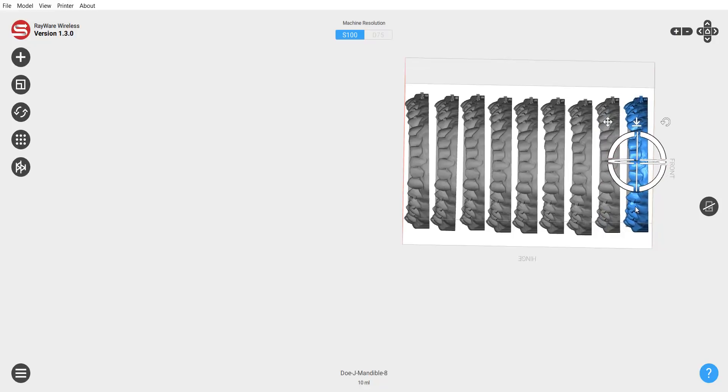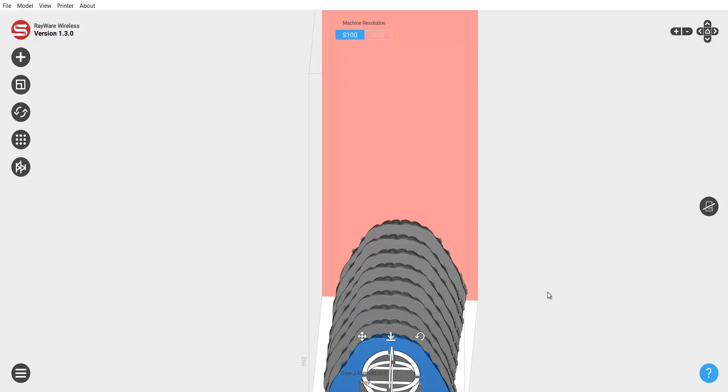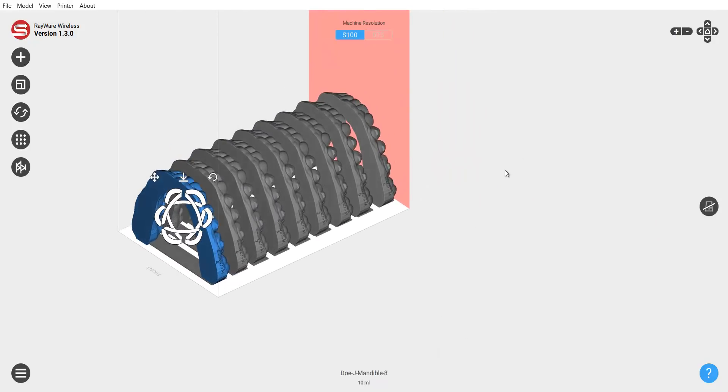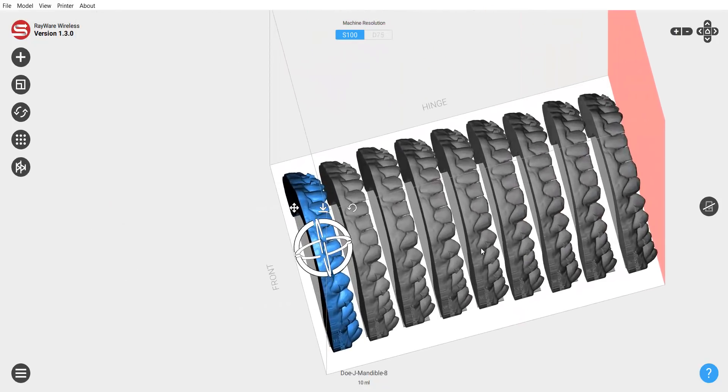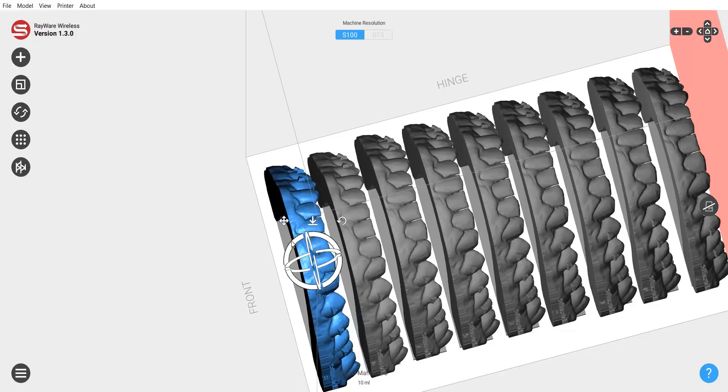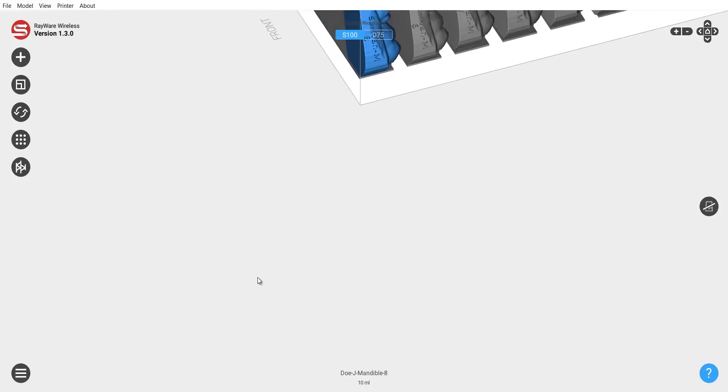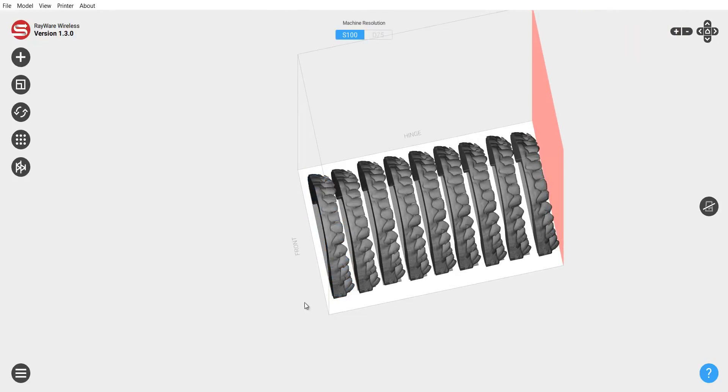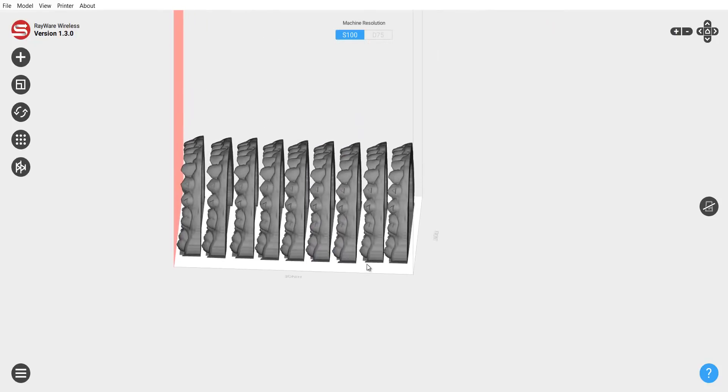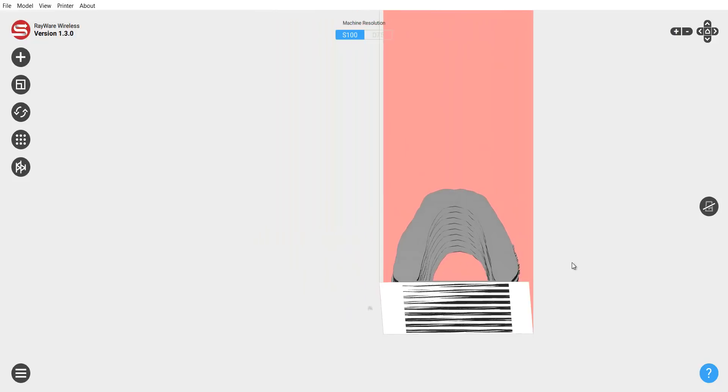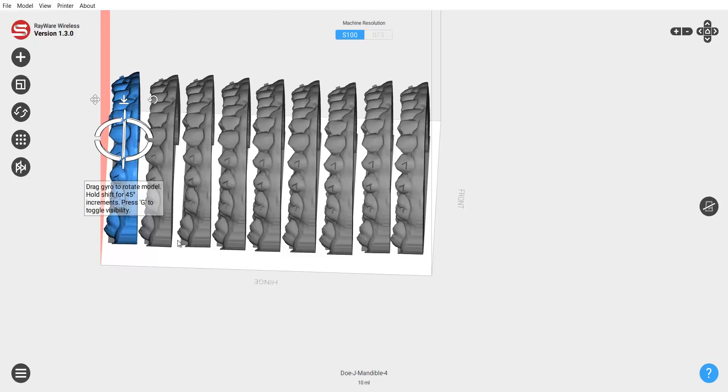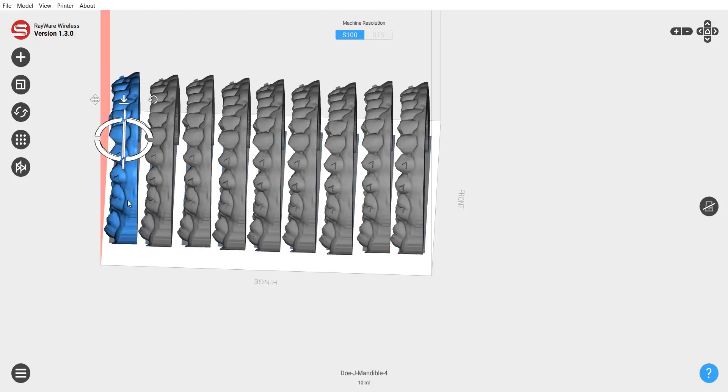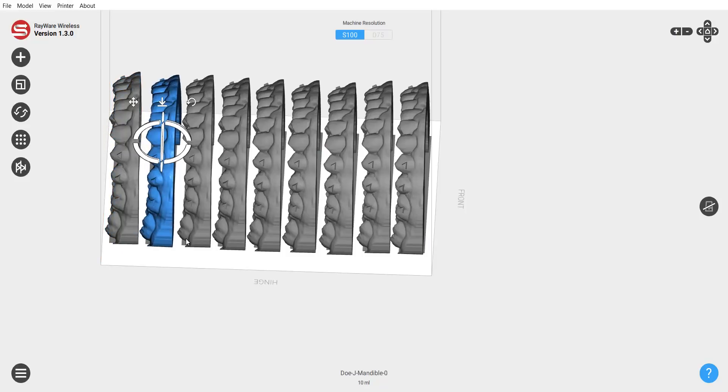Okay. So, here we go. So, now, pretty quick, I mean, it's not a big deal. It's not, you don't have to be perfect. But the idea is, and this, sorry. This model could probably rotate just a little. It doesn't have to be perfect. I can be very picky about getting things just right. So, now, you can see all the print beds, or the platforms, of course, are touching, they're going to print well. And then the models are essentially invested right within it. Let's move this one back a little bit since it's slightly violating the print platform. That's why it's red like that. There we go. And let's move this back a little. And then let's move the whole print platform back.